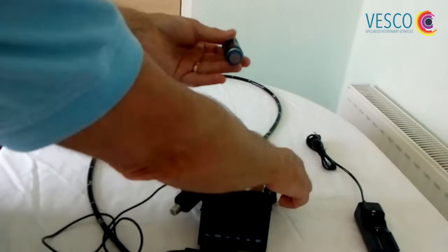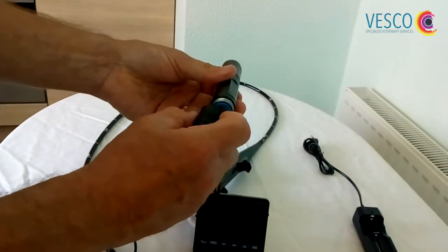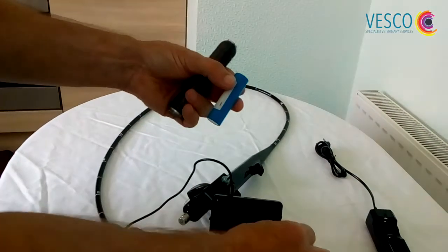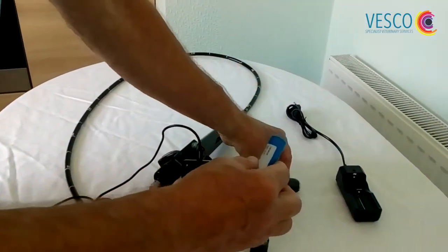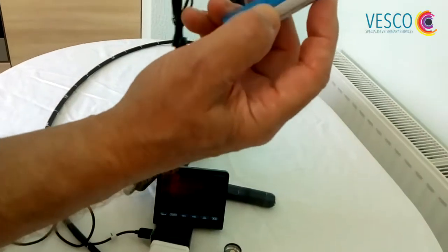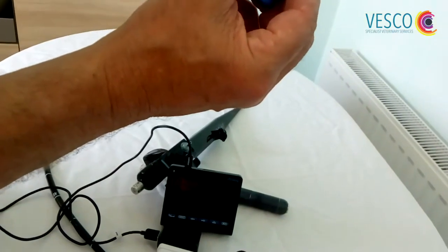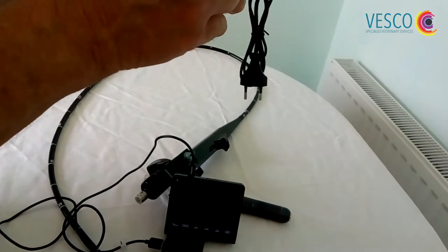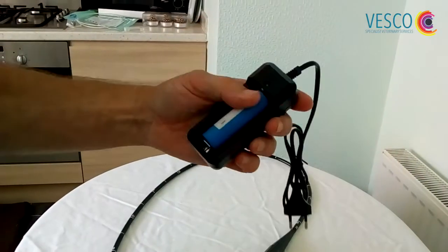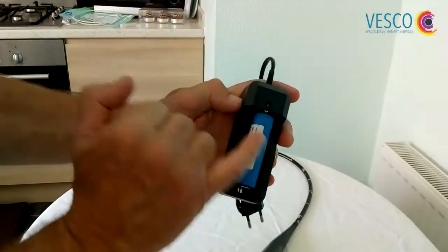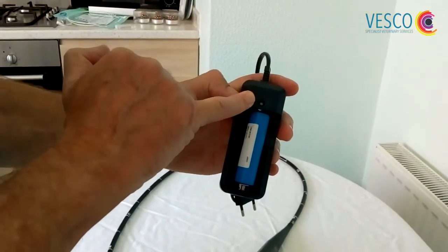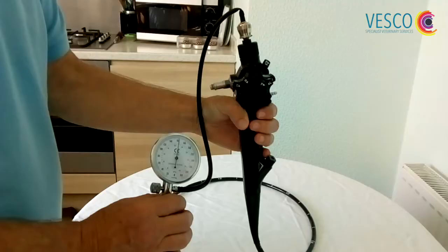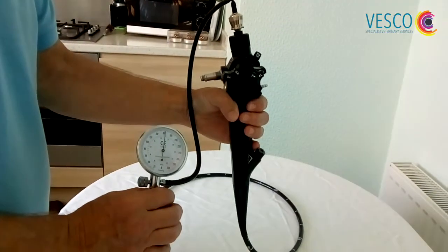The light source comes with its own rechargeable battery. It simply goes into there and screws in. Because this is an LED, once it starts to deplete it will just kind of diminish. In order to charge that, the positive has like a ring and indentation all the way around, so that goes into there like that. Plug it into your mains using your shaving adapter. It goes from red when it's discharged to green when it's fully charged.